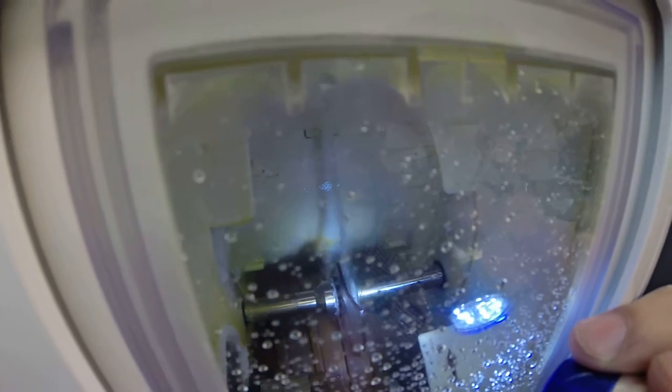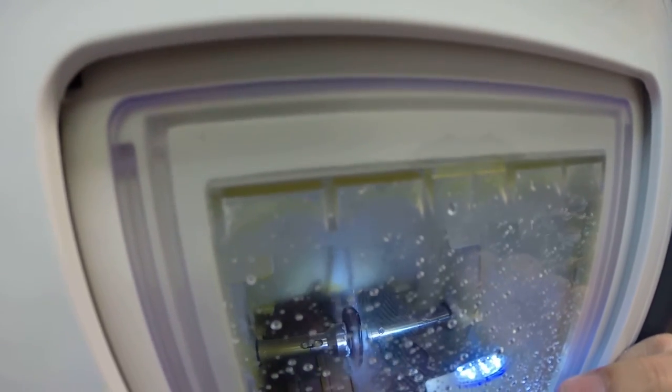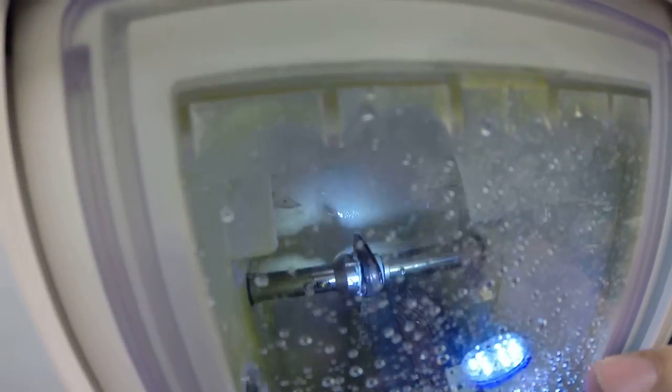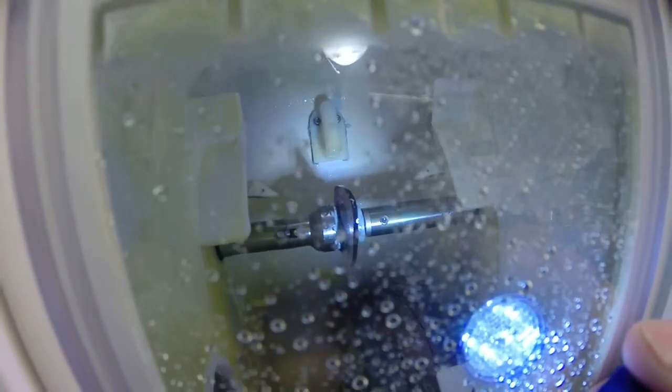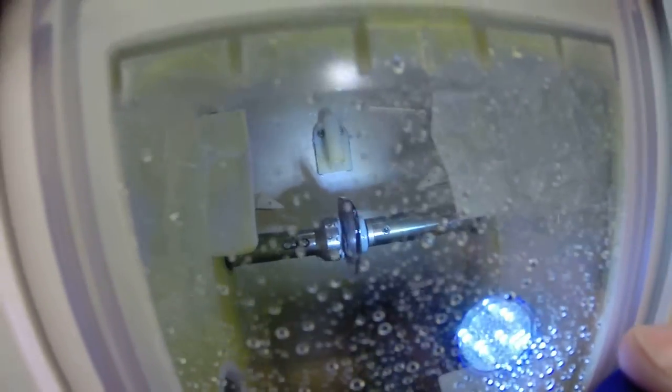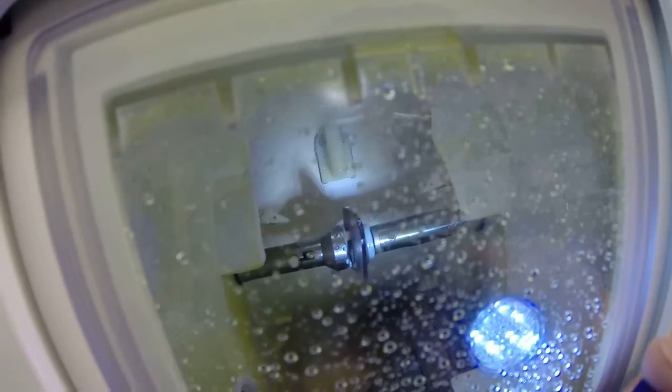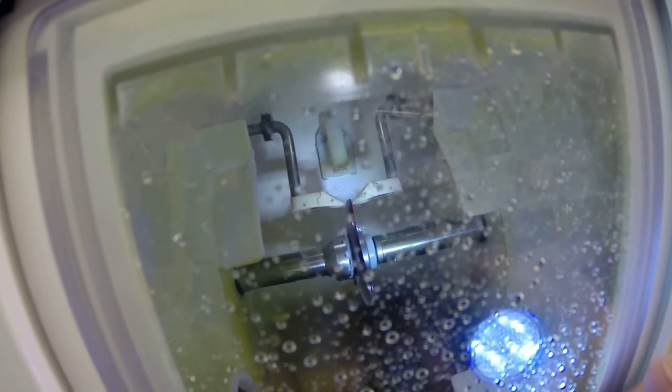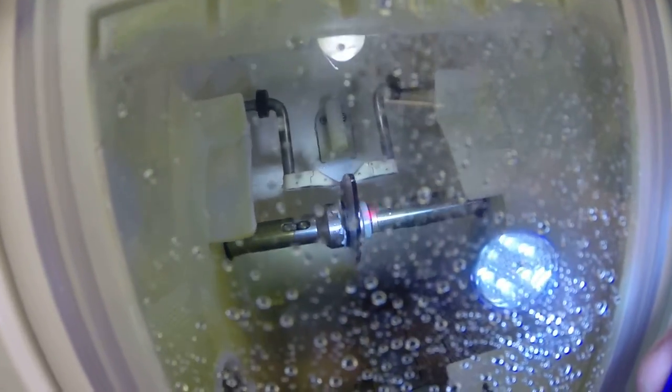Now, you need no prescription in the top. Essentially, this is just going to be like a clear window pane with 1.75 reading power in the bottom. If you notice, your lens is completely flat all the way around the edge, just like a nickel. If I were to take it out now, it would stand up on the counter.